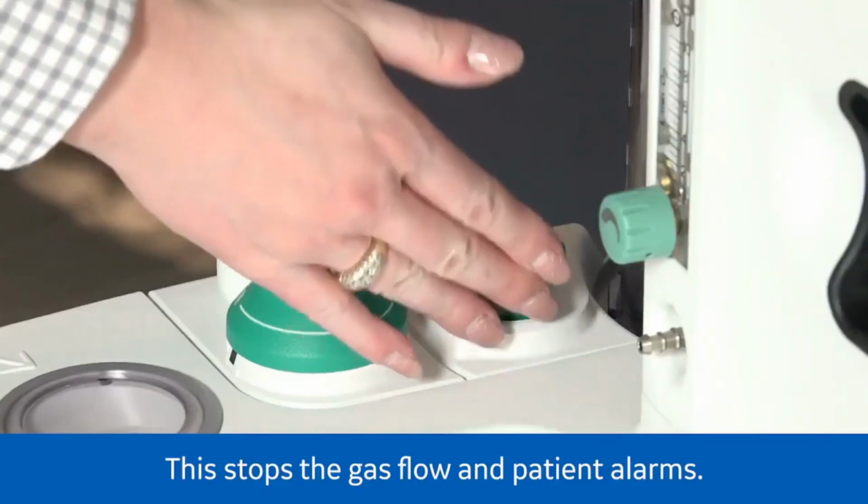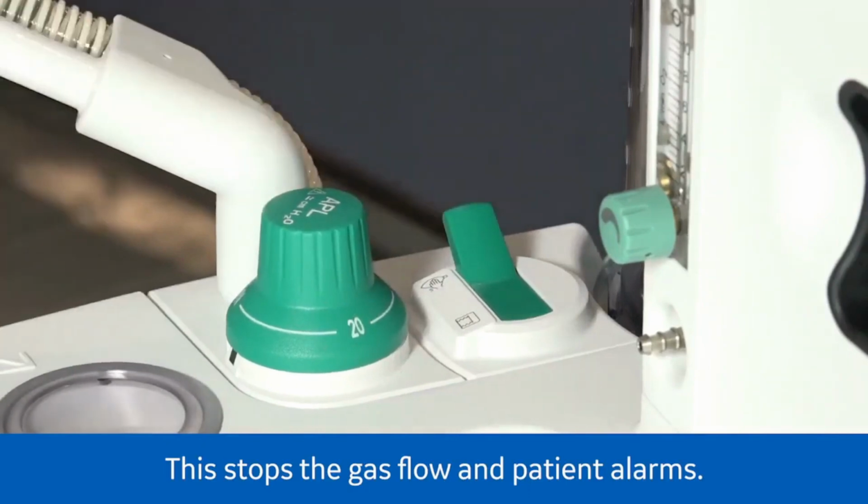To end the case, set the bag to vent switch to bag and select End case.